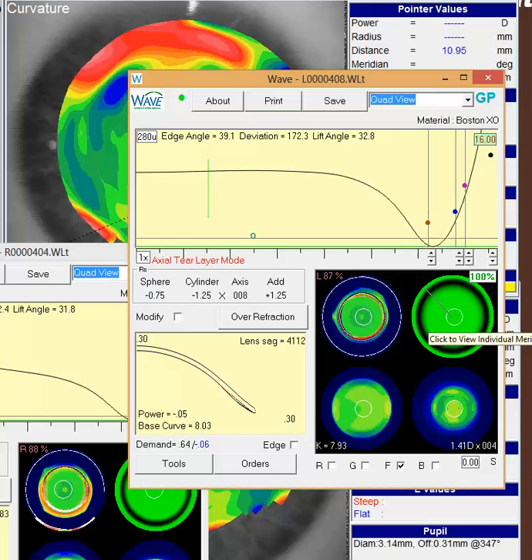I think you were mentioning that you felt there was a little more of a limbal bearing or concern about where it lands on there. So one thought is to move this zone out. And there's a nice little tutorial on the wave site. I'll also leave that link for you on how to maybe change this relationship out here very easily.